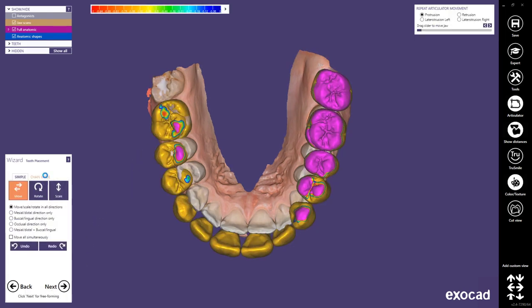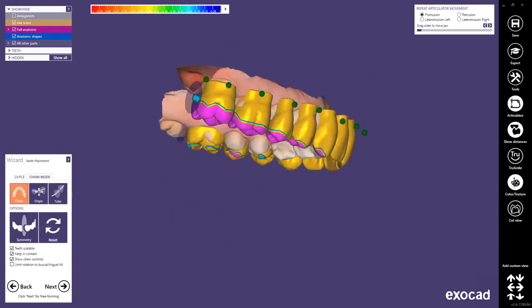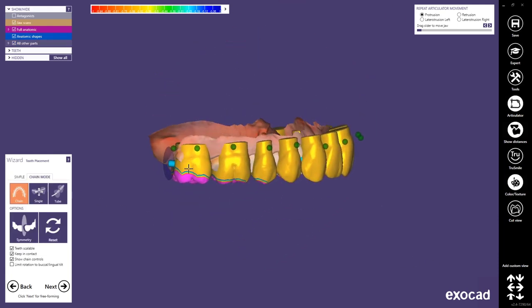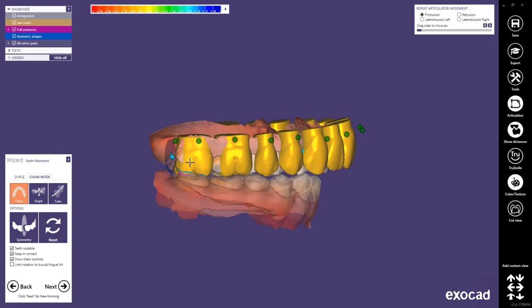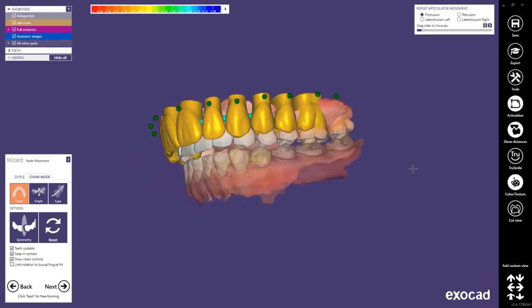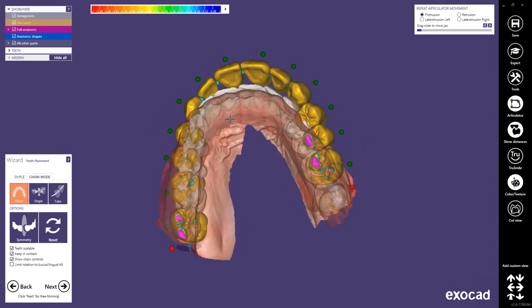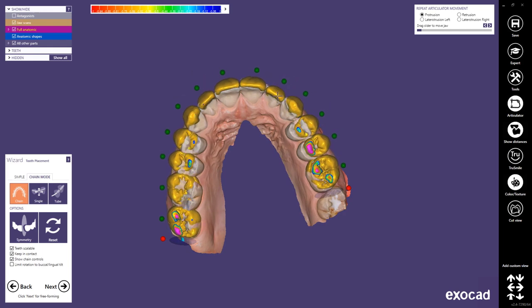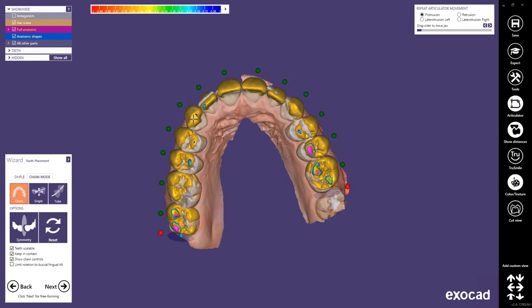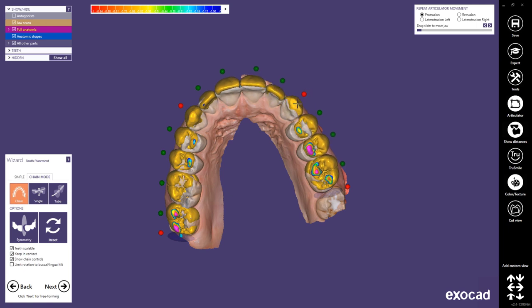In this step you can correct the positions of the whole tooth arch. I recommend for a work like this to use the chain mode. As always I start off with correcting the position of the last molars and locking the disks. I always recommend locking the disks instead of the last molars because now the endpoints of the arch are locked but the molars themselves are variable in size and direction. Now you can move around the anteriors and see the whole arch deforming and adapting — I normally start with the canines first.